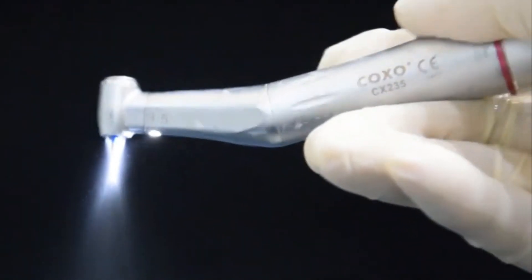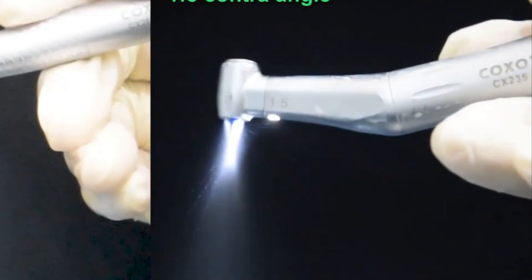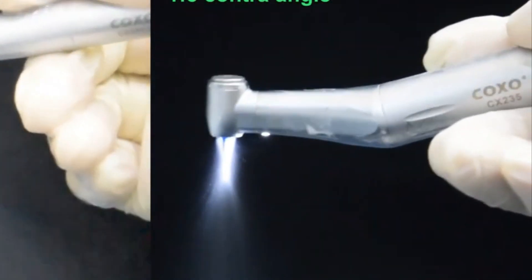As far as how it feels in the hand, the end of the drill with the motor tends to be a bit heavier. Some dentists prefer this feeling, some prefer the more evenly distributed feel of the turbine-powered drill.